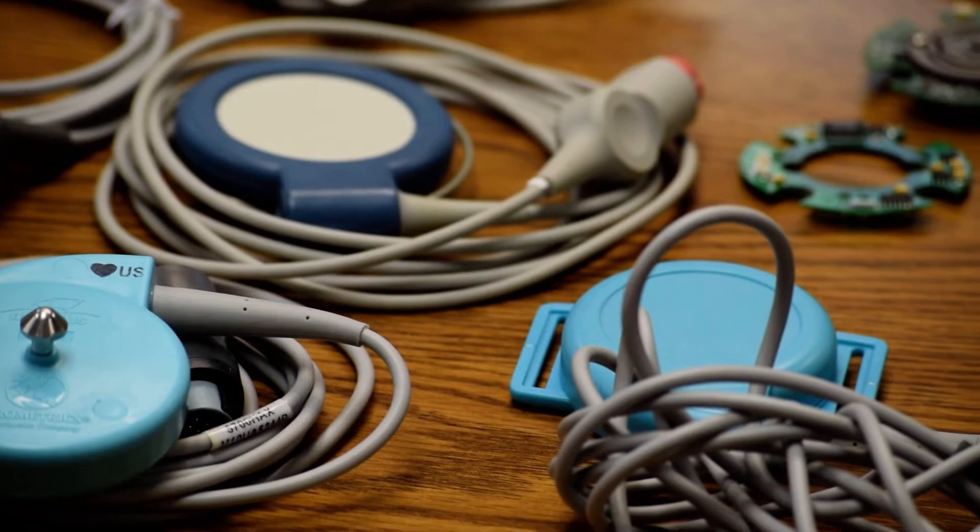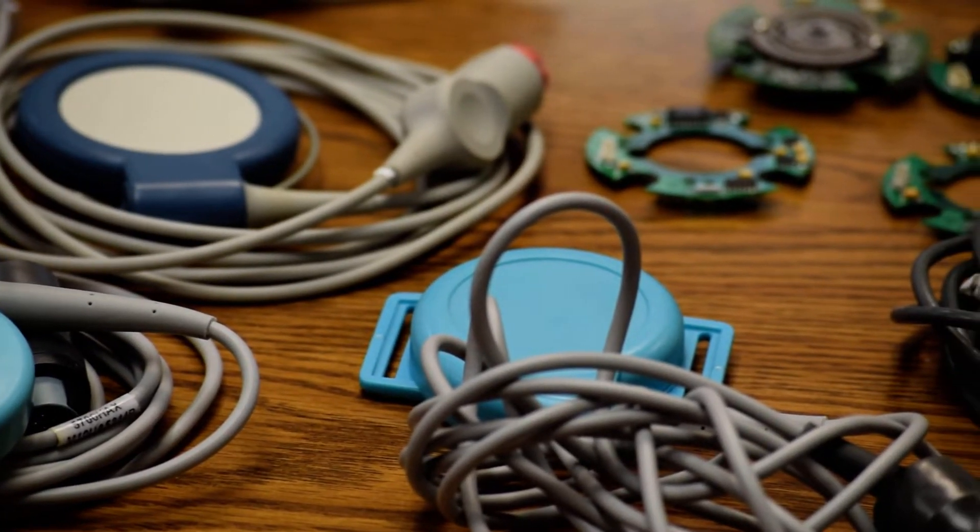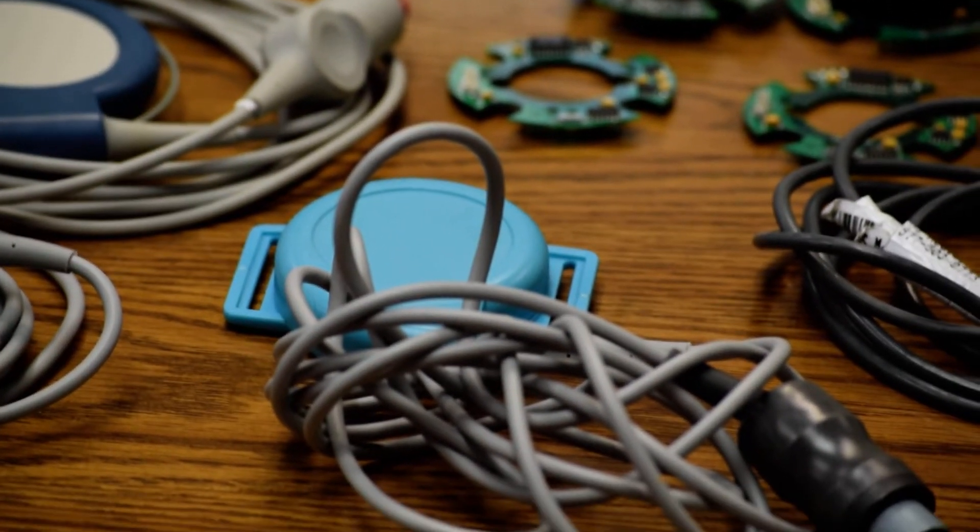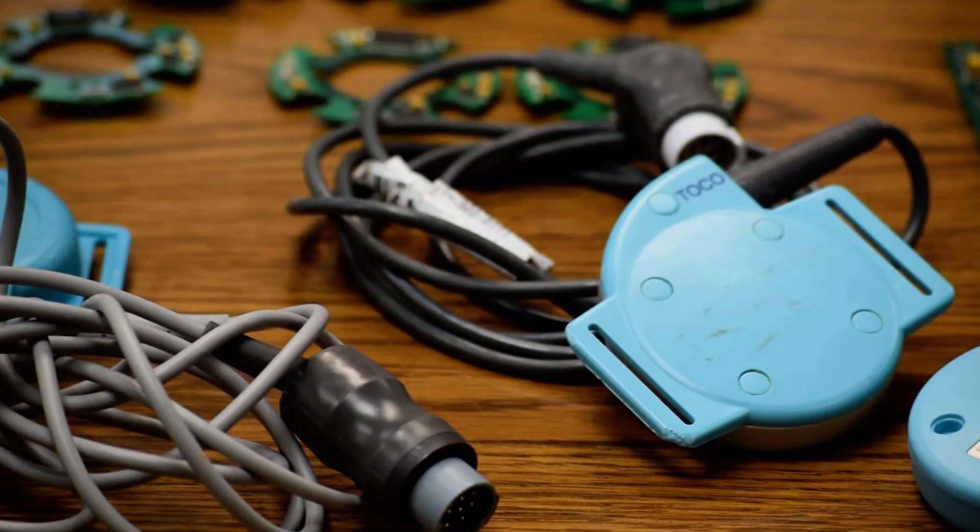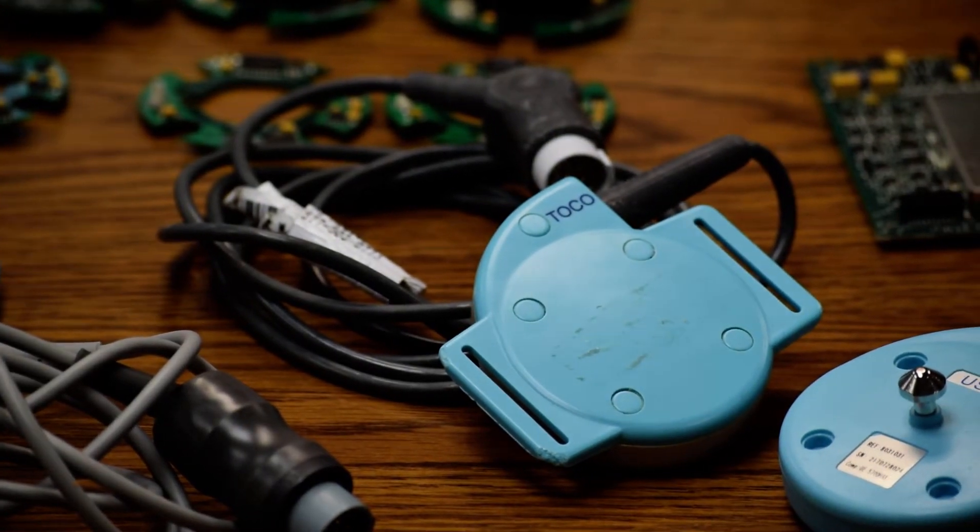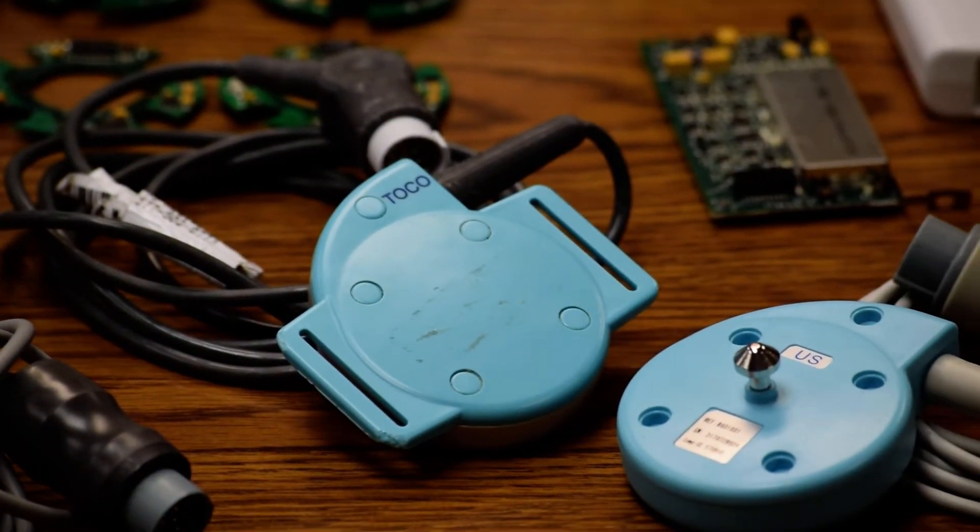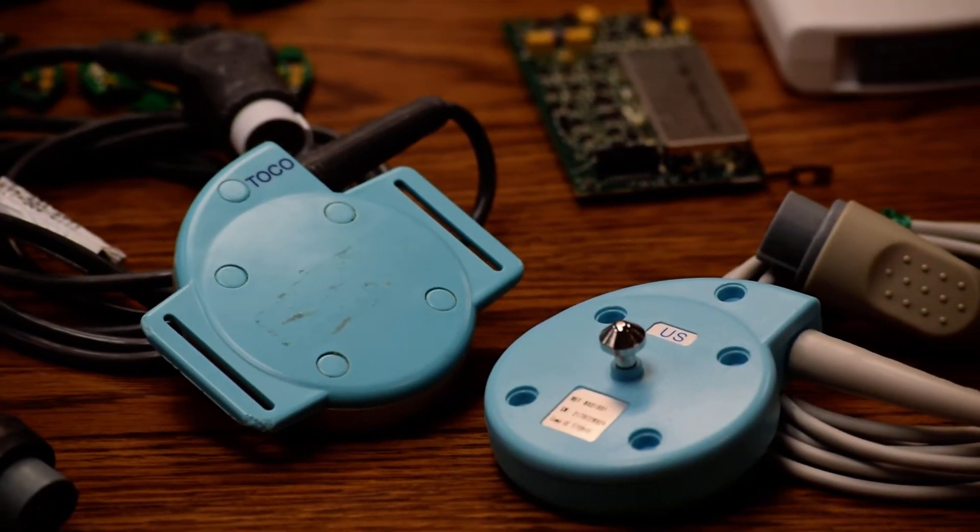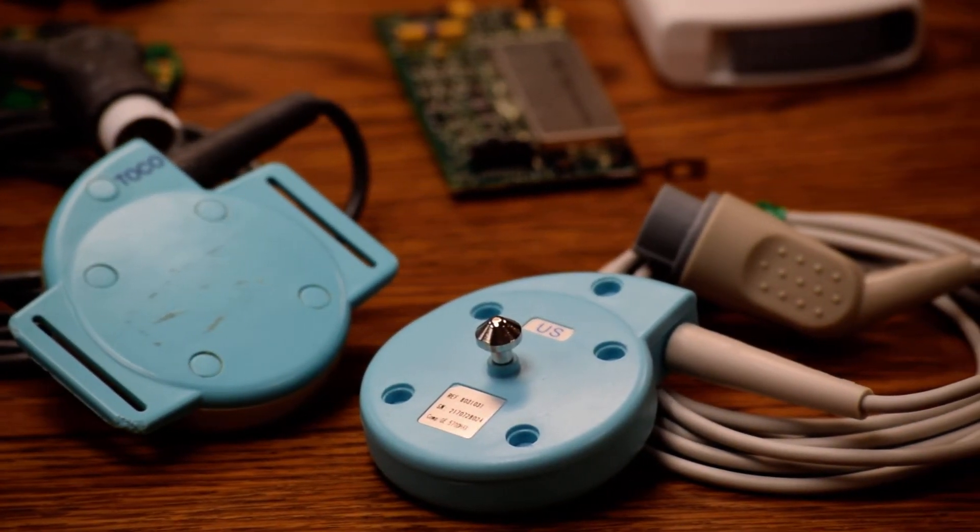On the right, there are transducers. One of them is repaired with a dark color cable. The other one with a white cable is a compatible unit. They keep failing repeatedly, don't function to OEM the same specification at all.